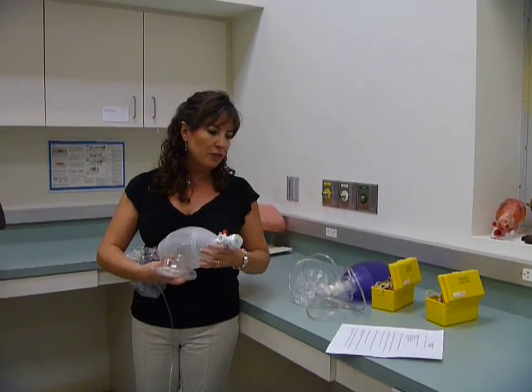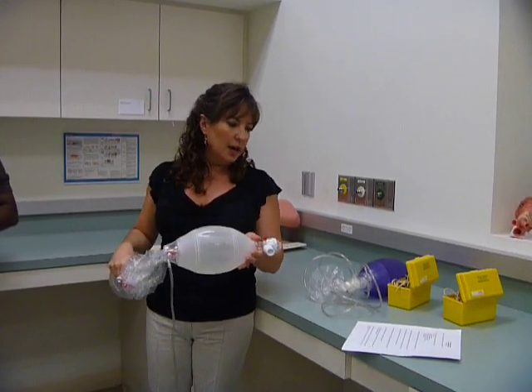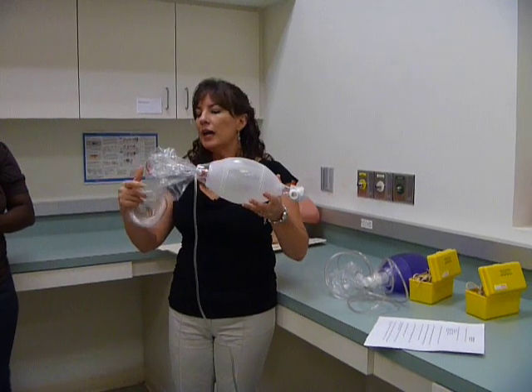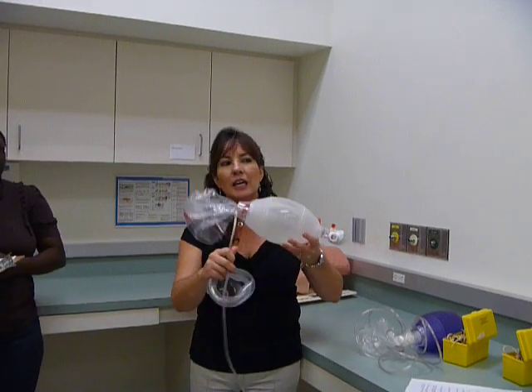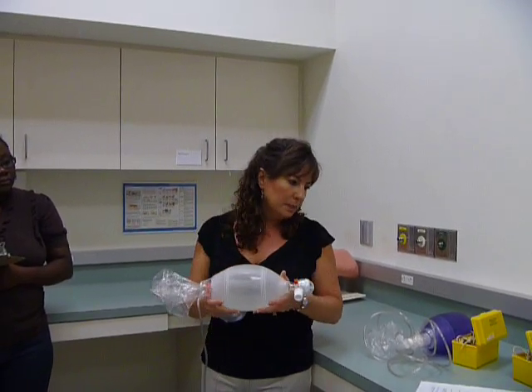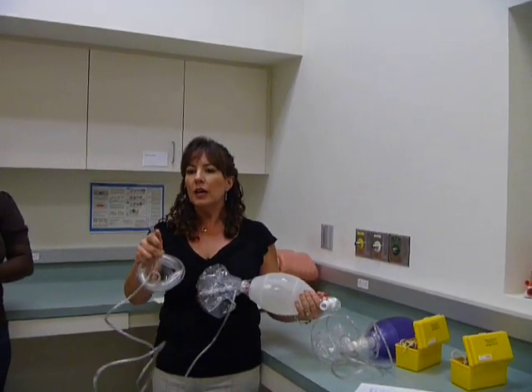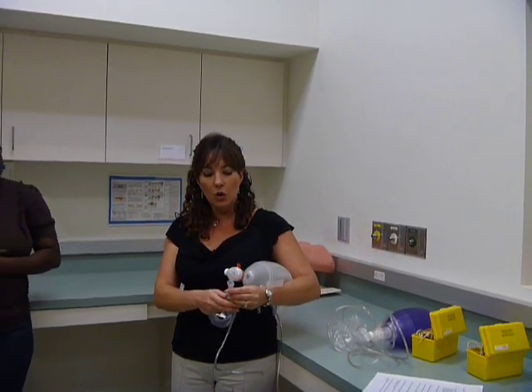You're going to identify the following parts. First, the inflation bag, which is this part here. The oxygen reservoir is here. The reason why you have a reservoir on any device is it increases the amount of oxygen — you're not just getting what's coming from the flow meter, but it's also able to pull from the reservoir. This fills up with oxygen as well as what's coming through the tubing. The oxygen attachment port is what's going to attach to the flow meter. Look at how it's designed — it can either be screwed on without a Christmas tree or nipple adapter, or you can just push it right onto the nipple adapter.